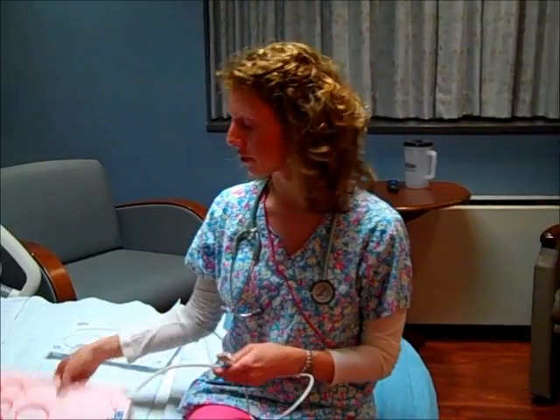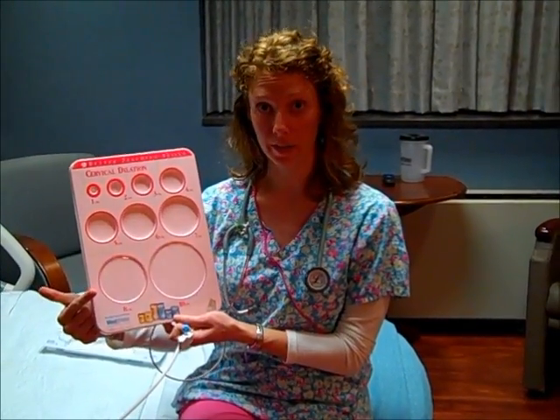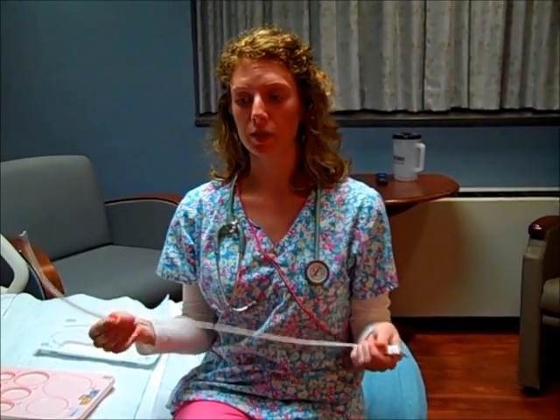Say she's not dilating very quickly, or she's not dilating at all, and you want to know, yeah, I see these contractions hurt, but are they strong enough to actually make the cervix change? Because the contractions are what cause cervical dilation. So you may need to put in an IUPC, because once you put this in, it will tell you in Montevideo units, or MVU, the actual measurement, which is the tool providers can use to assess for adequate labor.